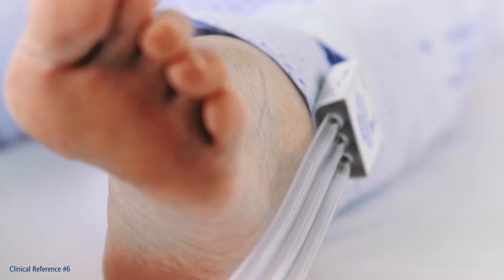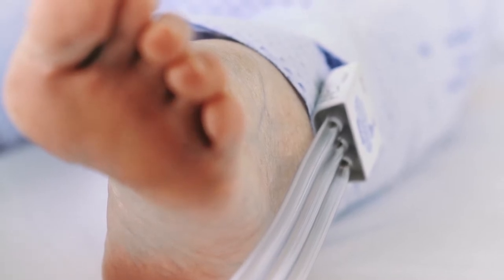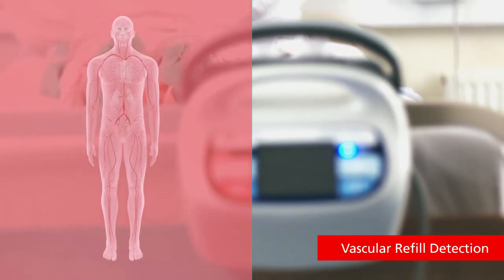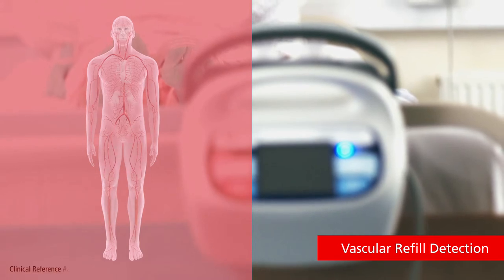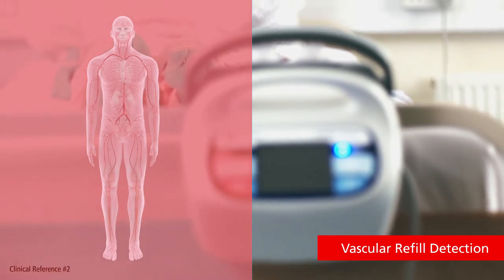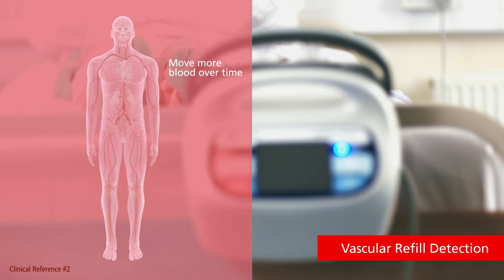The Kendall SCD system utilizes a proprietary technology called vascular refill detection, or VRD, which customizes compression for each patient, moving more blood over time.